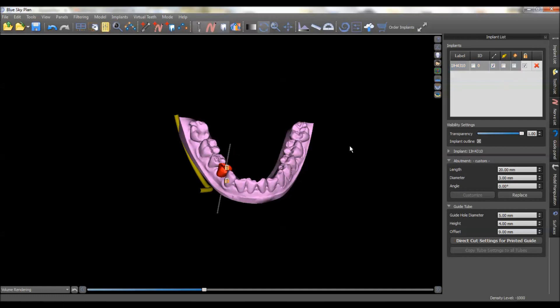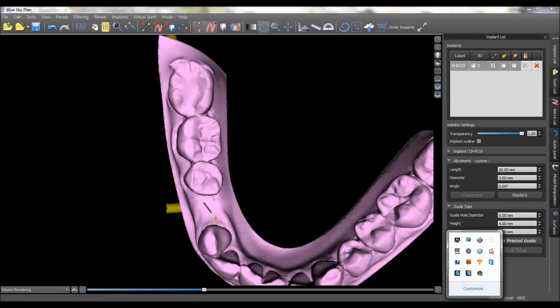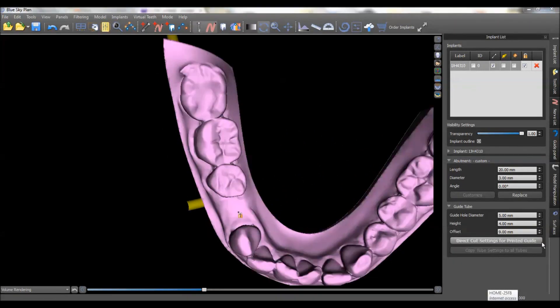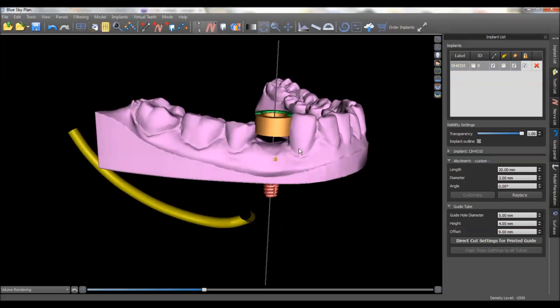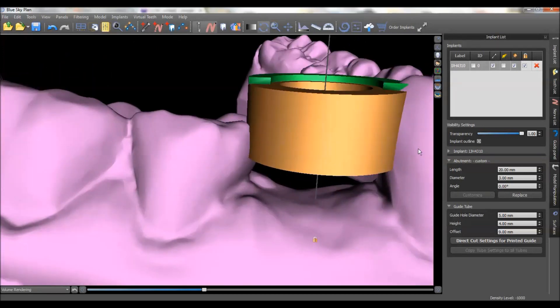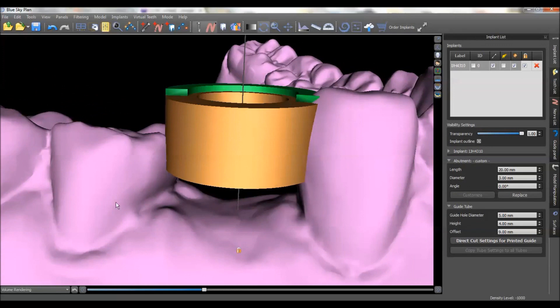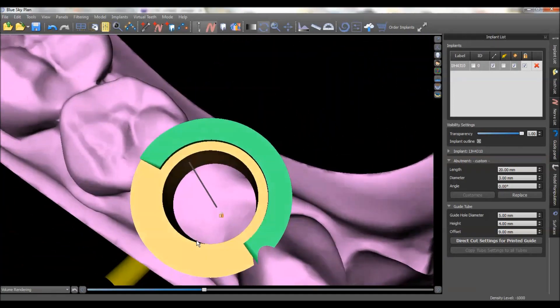We can turn off the abutment and also turn off the tooth. Now it's time to make a guide. When you're going to make the guide, you do need to turn on the guide ring — that's this little icon right here. Once I've done that, I notice there's a little bit of an issue: the ring is actually eating into the teeth themselves. Right here we've got a narrow spot and we're placing a fairly wide implant, so this could potentially be an issue.